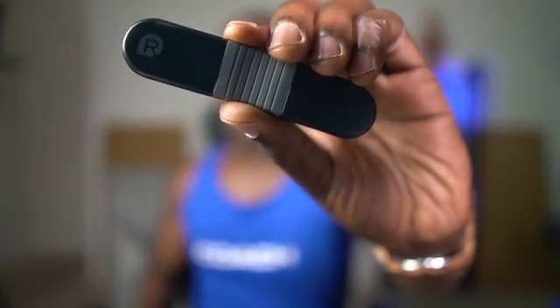An ECG, or EKG, is an electrocardiogram. It shows you the electrical activity of the heart. But how do you do one at home? My name is Leslie Samuel, and in this video I'm going to show you how to do a 24-hour EKG at home using this little device right here. So let's do it.